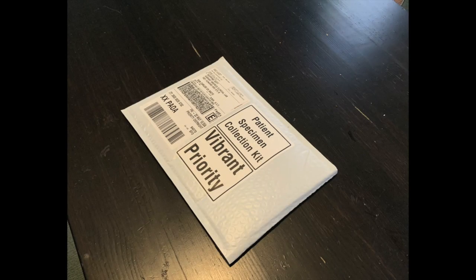Clean and clear a space at which you will collect your sample. Do not open the dry blood spot kit until you are advised to do so by your attending healthcare professional.